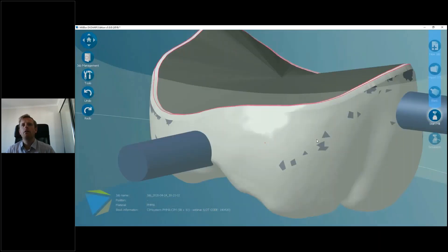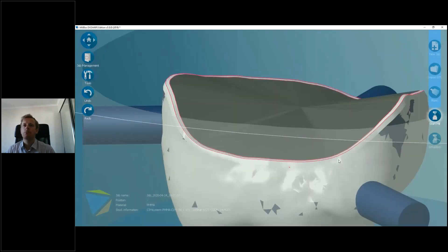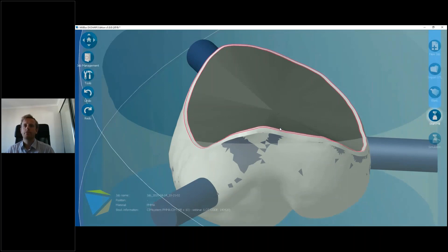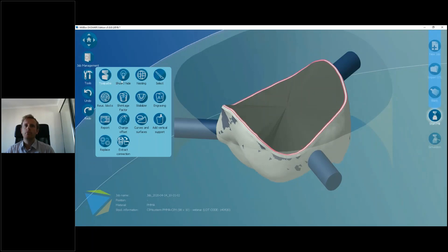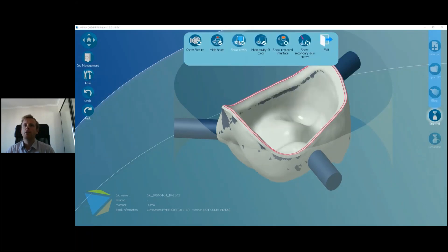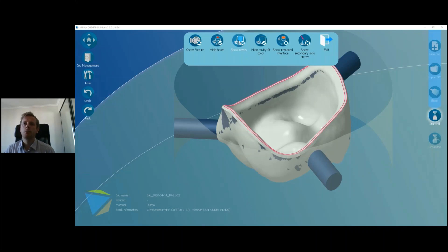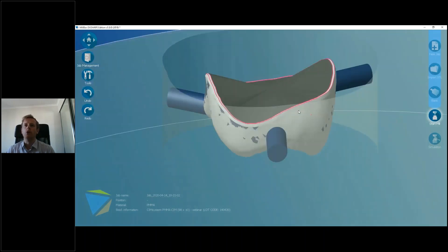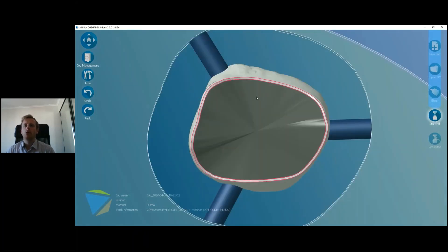We also see the cavity is covered by a gray cap. This gray cap tells us visually that it's detected the cavity as an independent part of the crown, distinct from the organic shape. We can show and hide these — go to Tools, then Hide, then Hide Cavity. I personally like to always show it so I know it's been detected and that I'm going to get a good milling result. Step one is always check that you've got your margin line and your gray cavity.